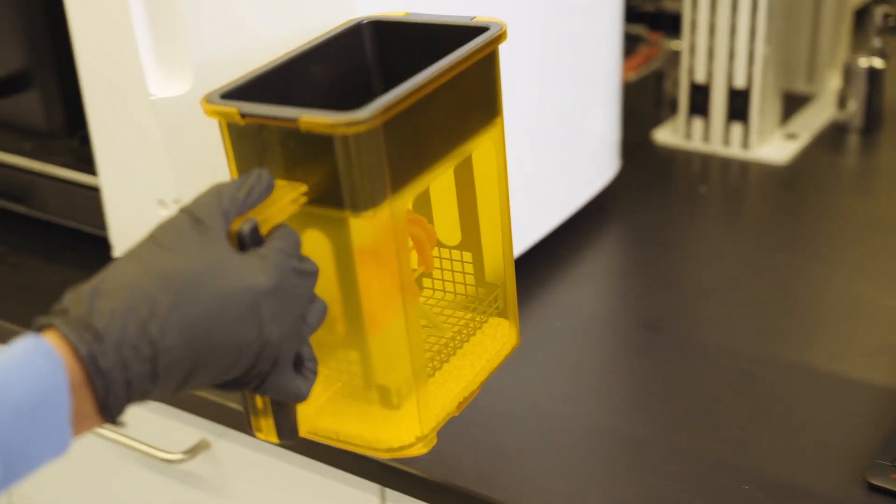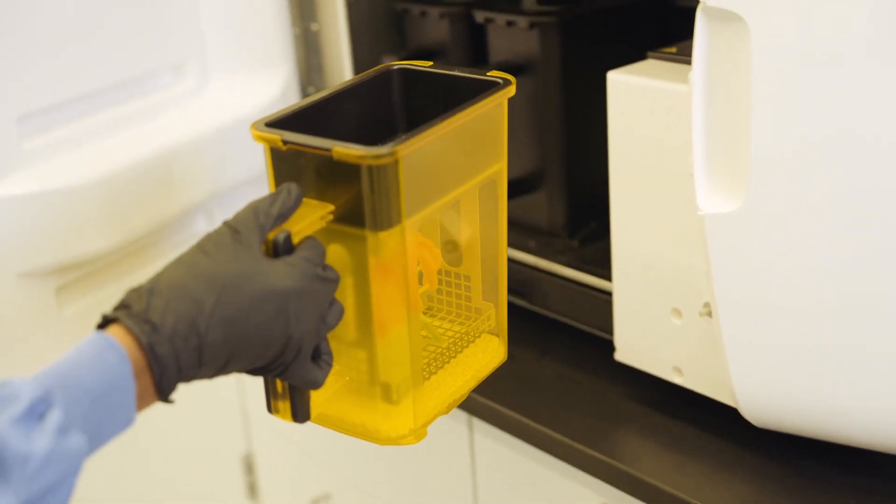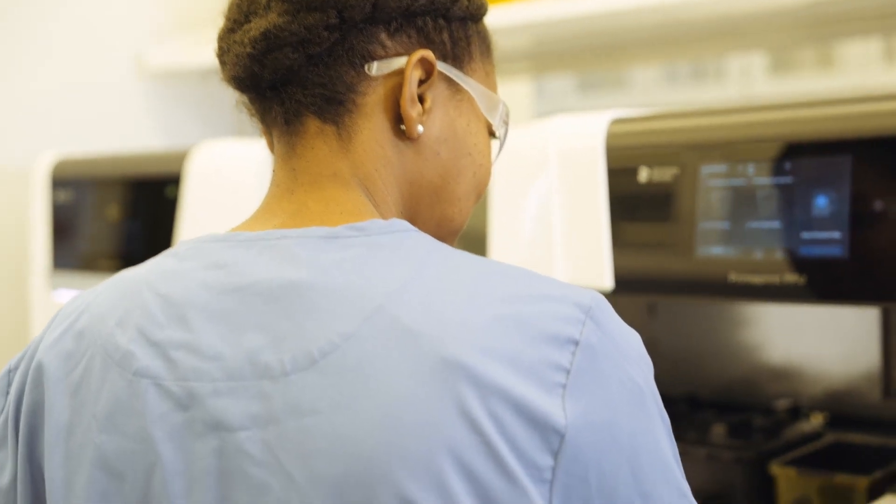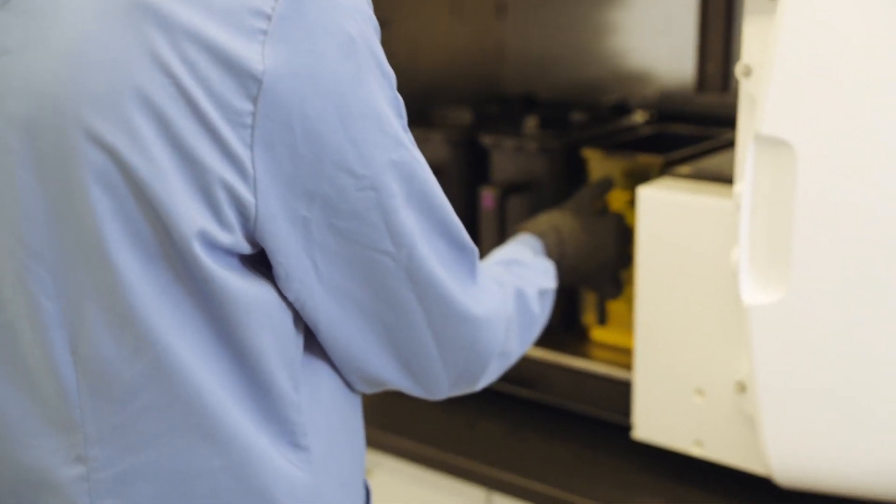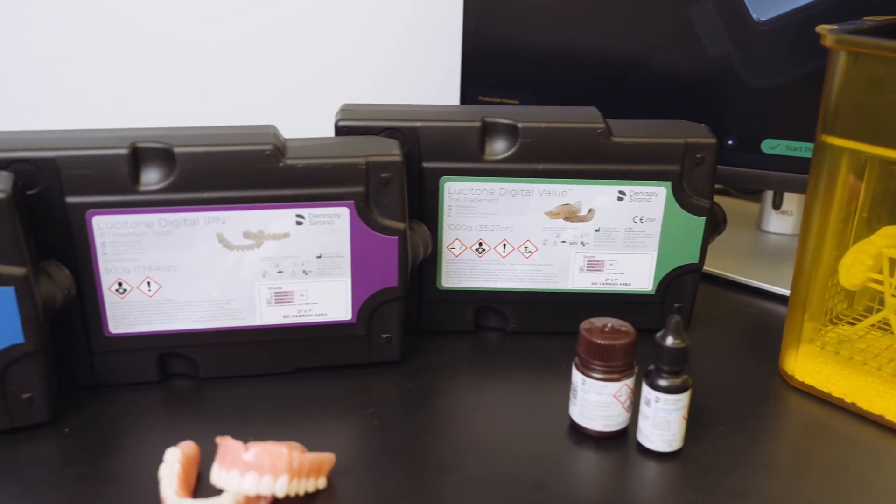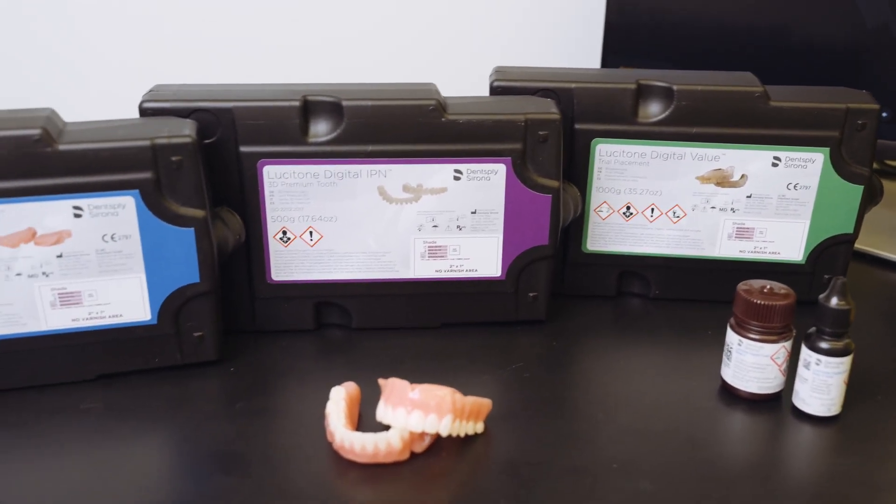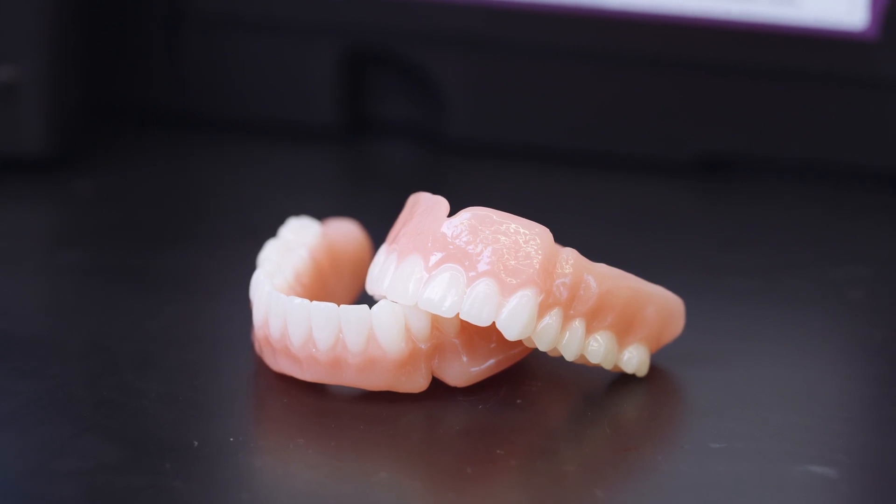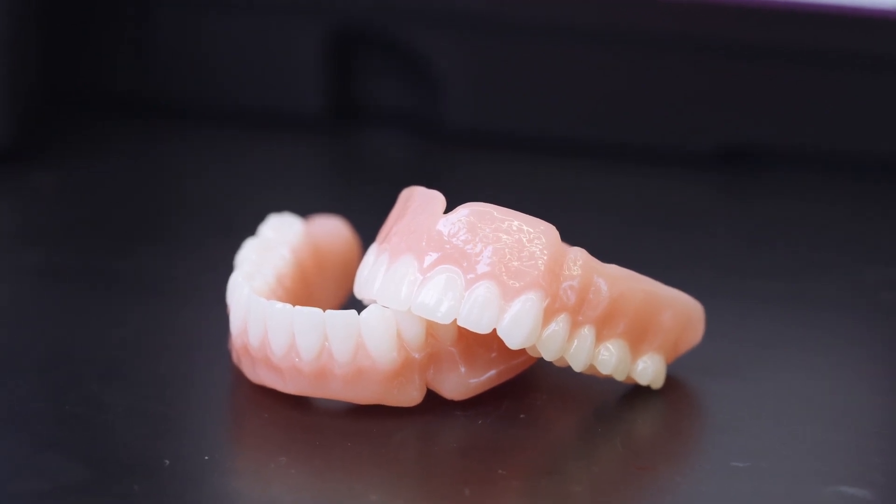We can establish what the outcome might be, therefore using the entire system it's safe, it's predictable and the results are very nice. I look forward to implementing this in the business because I think the denture world needs to exist but needs to be done with this workflow. I would implement this next week if DS allowed me to.